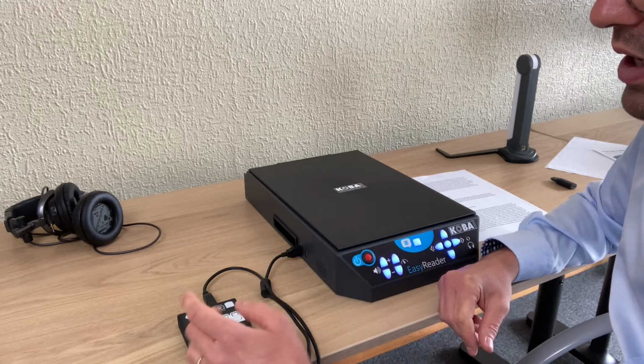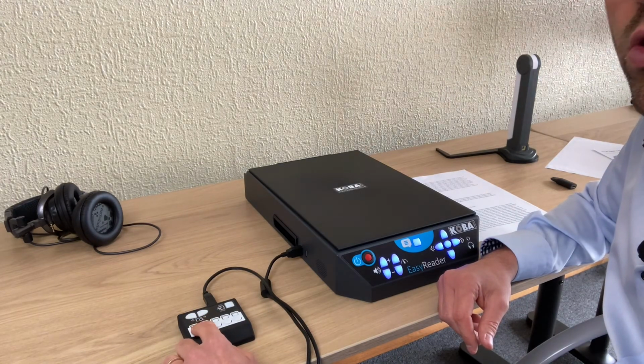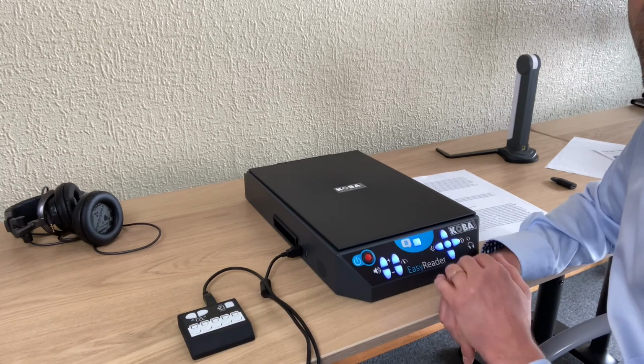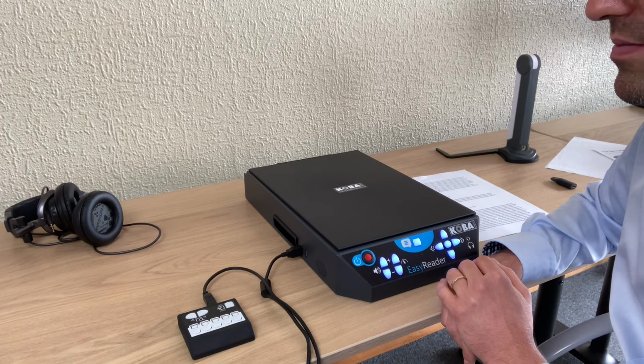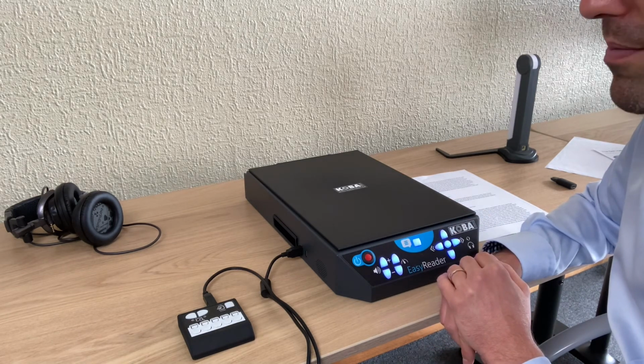So when I would like to read the text that's on that position, I just press short. Load text from position 1 on hard disk. This position is occupied. Press again to confirm. I'll confirm to read. Okay, and now I stop.